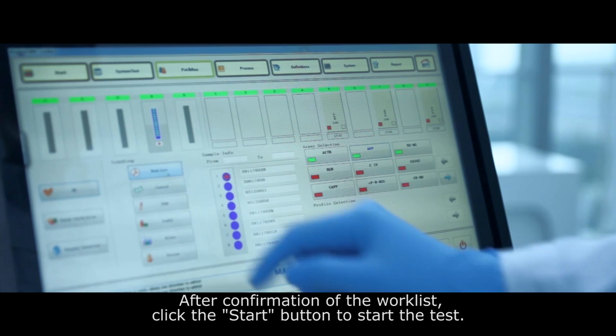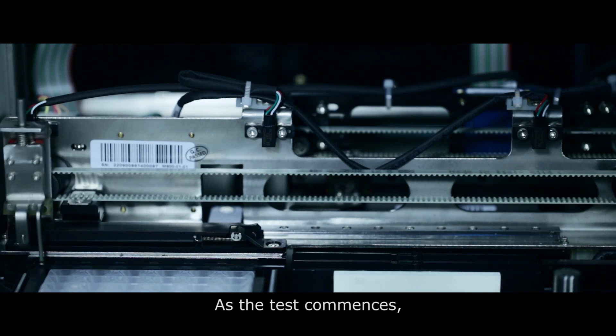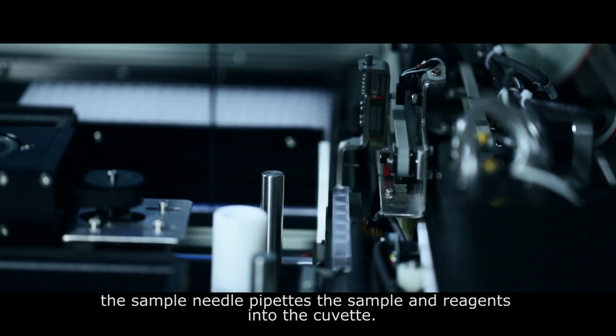After confirmation of the work list, click the start button to start the test. As the test commences, the sample needle pipettes the sample and reagents into the cuvette.